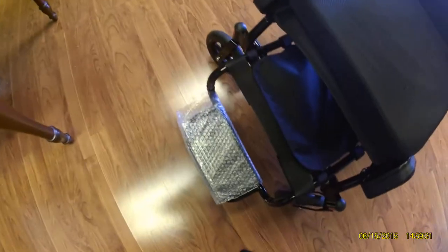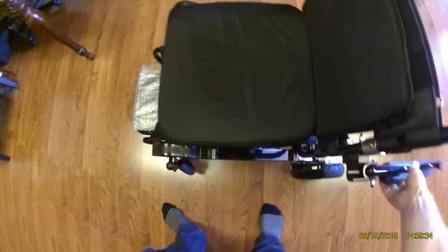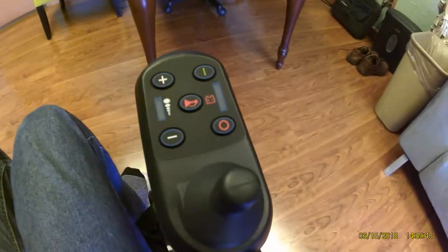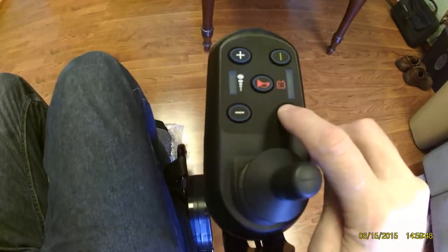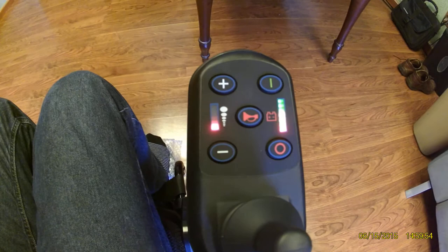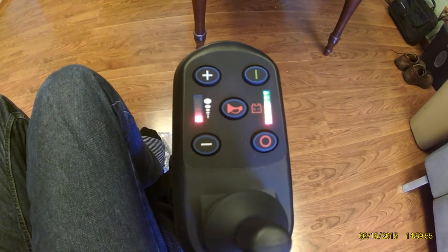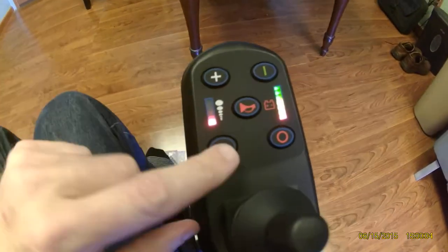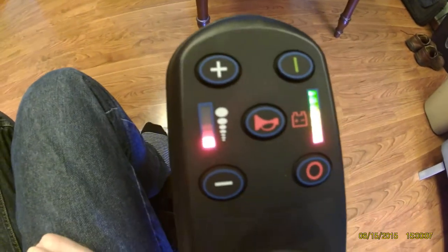You could either mount in the front of the chair or do a sideways mount when getting in the chair. Focusing on the joystick, it is as simple as pressing the green button. The battery has been pre-charged, the Airhawk is ready to roll. It has a horn built in, and you can see that it is currently on the lowest speed setting.